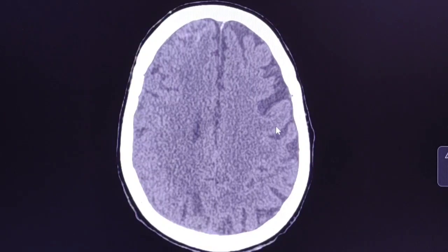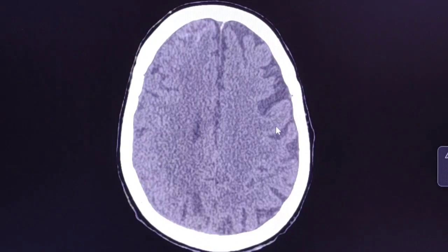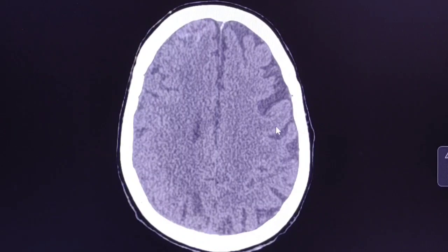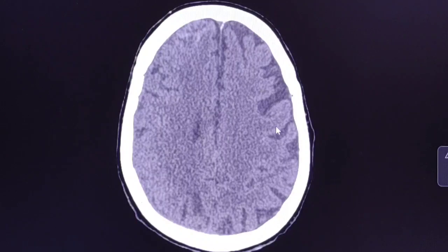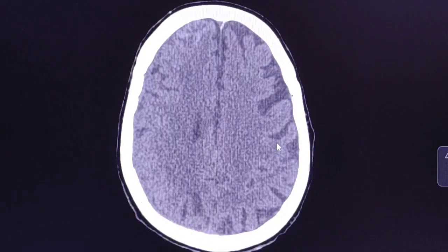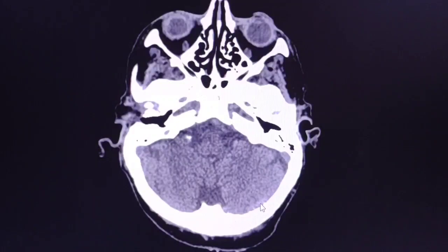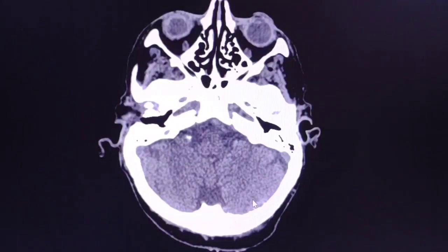This is a case of a 77-year-old woman who fell down a full flight of stairs, had a head injury and loss of consciousness. A CT scan was done. Let's see some findings.